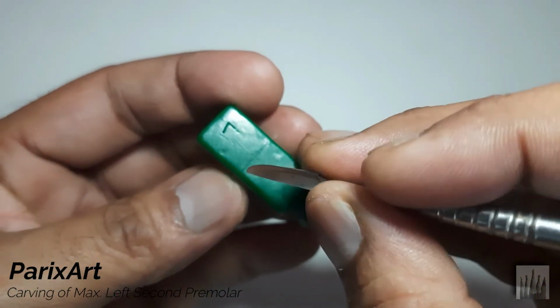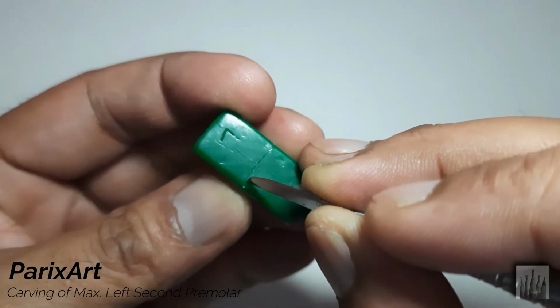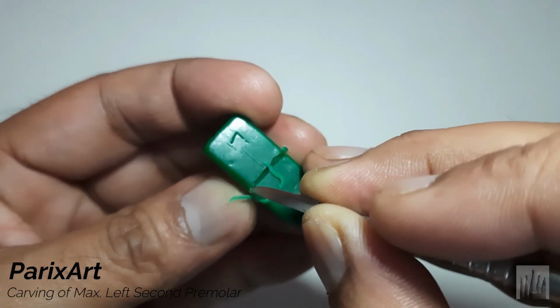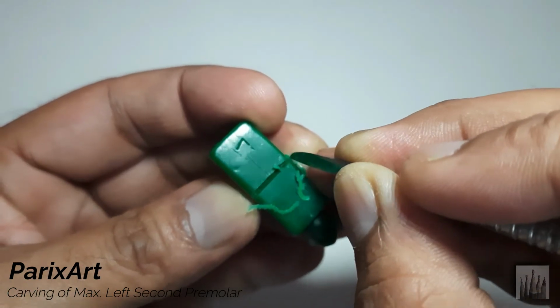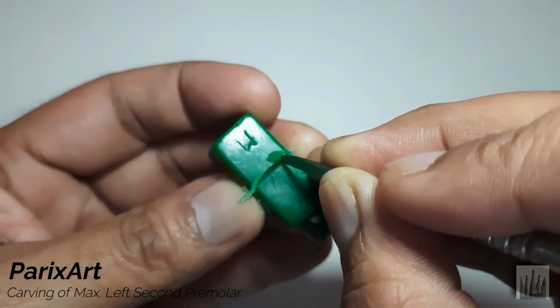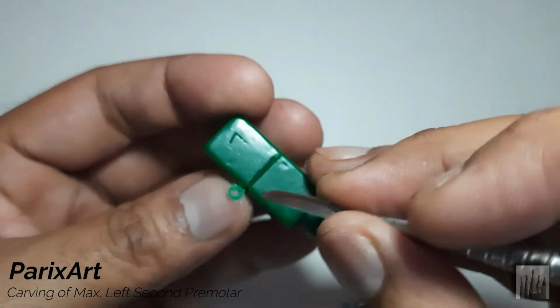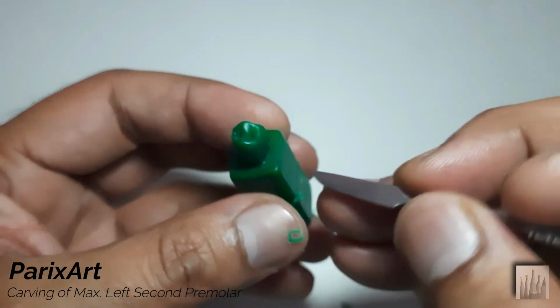Okay, so let's start carving. First make the notches at the root marking. Now cut straight down to these markings.